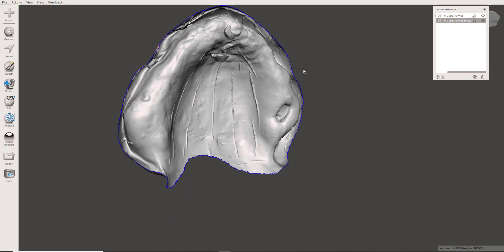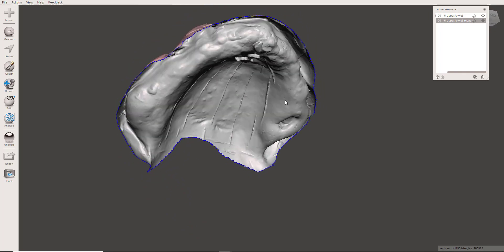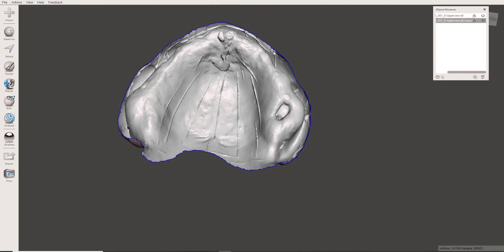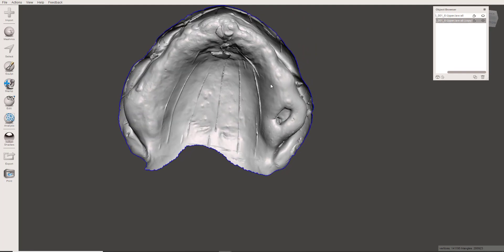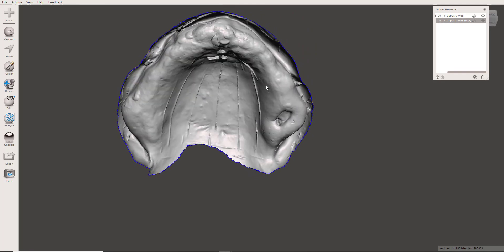If you look at this model right here, right now there's not a base to it. It's not printable, and we need to do that.